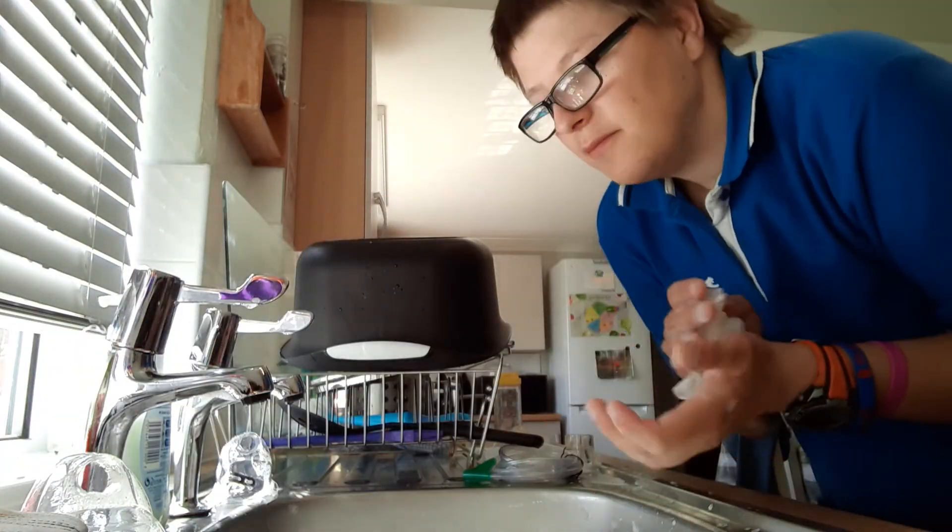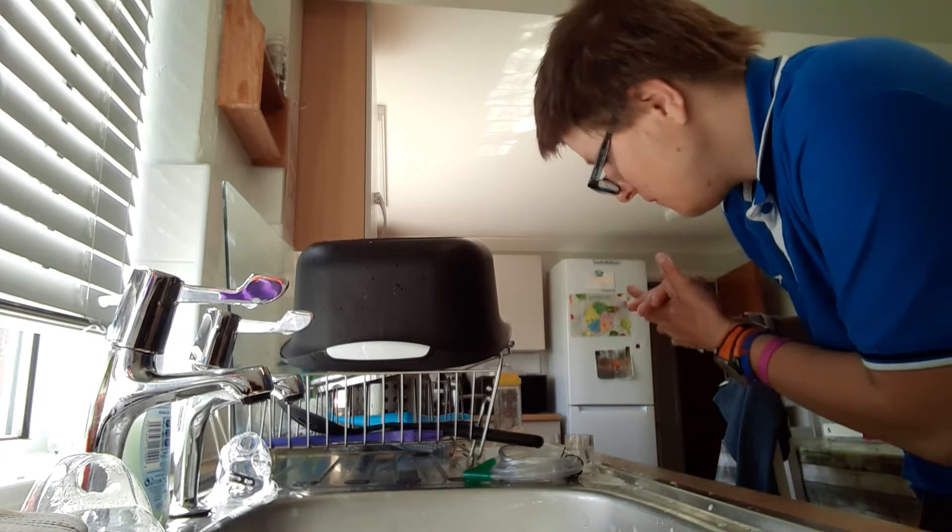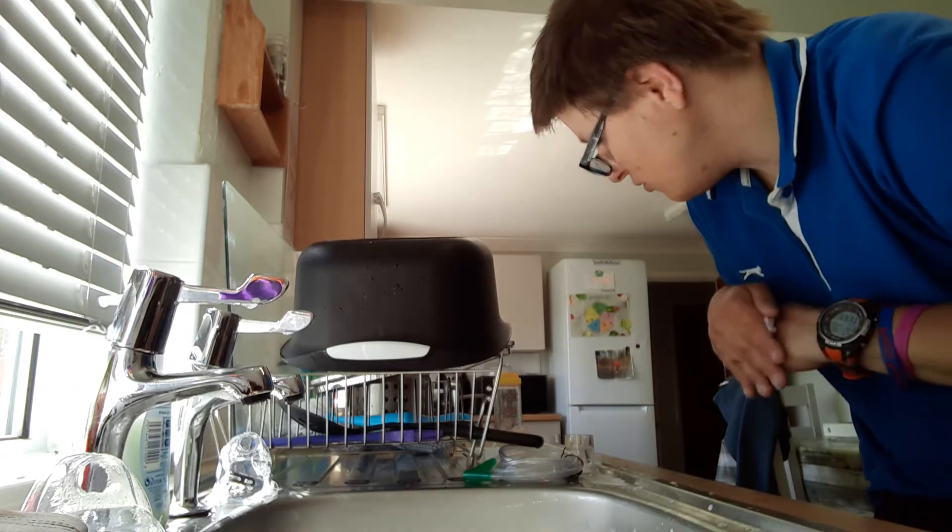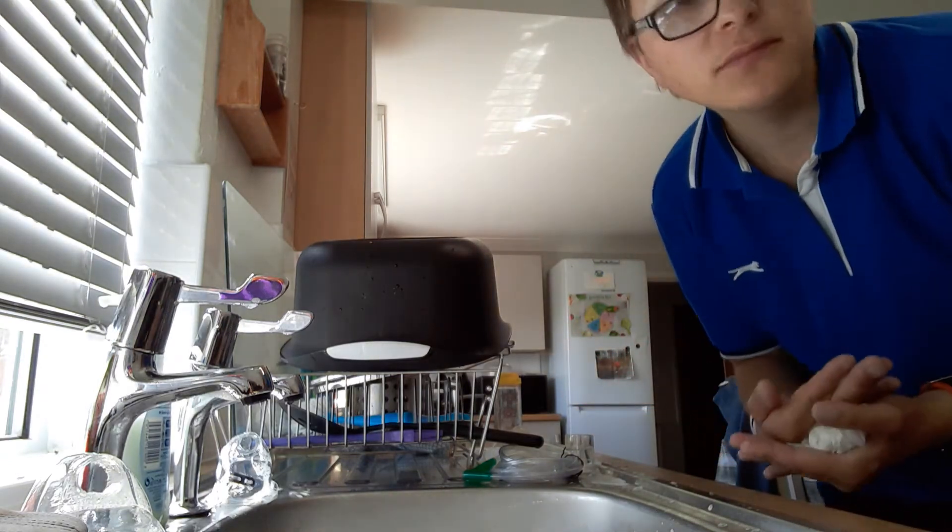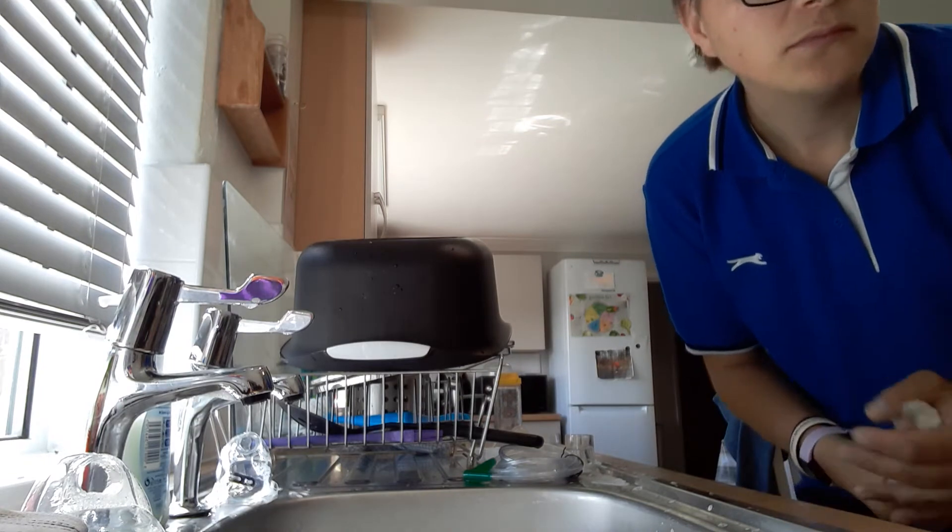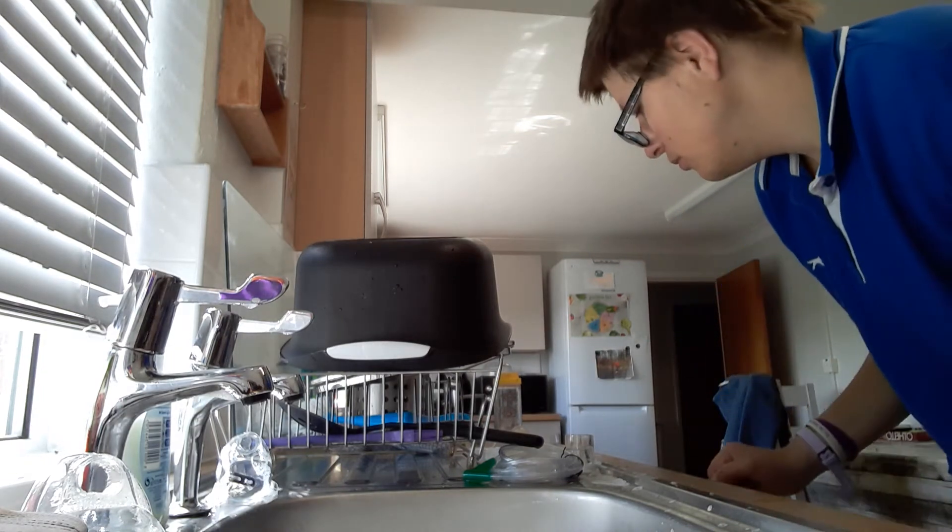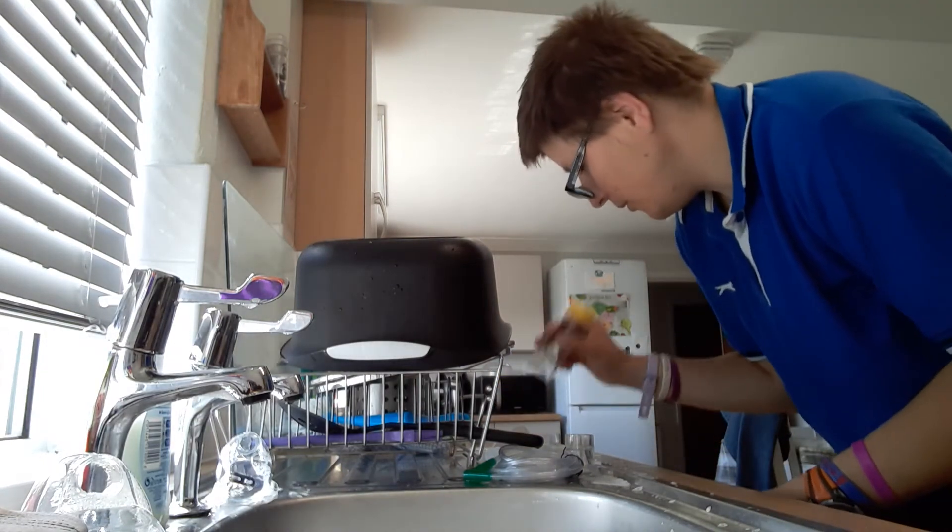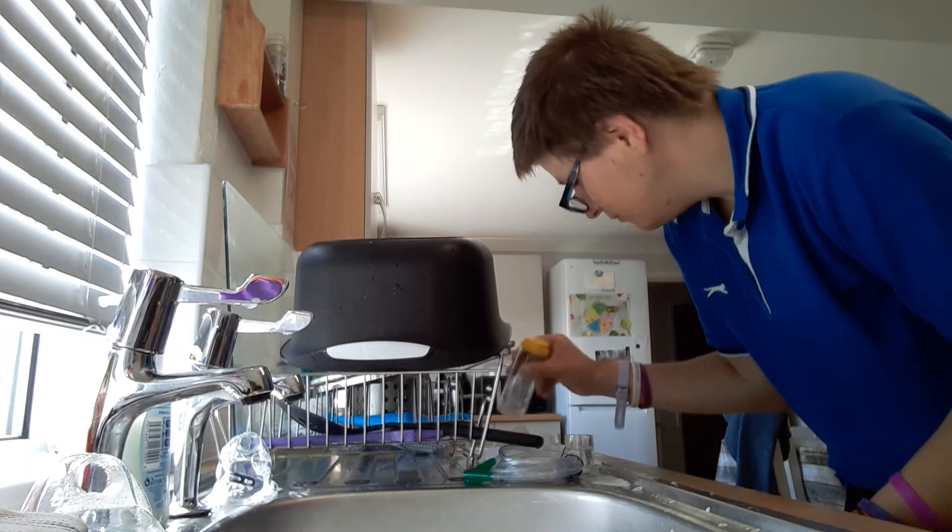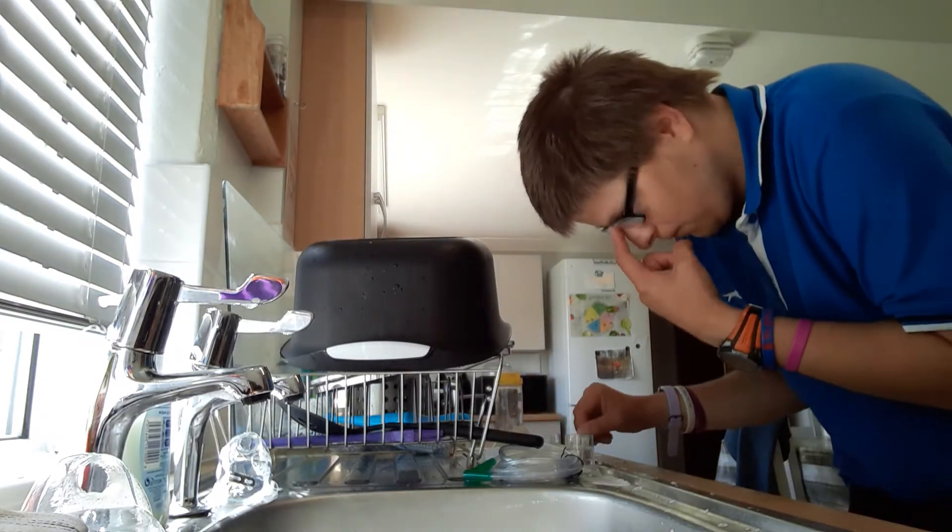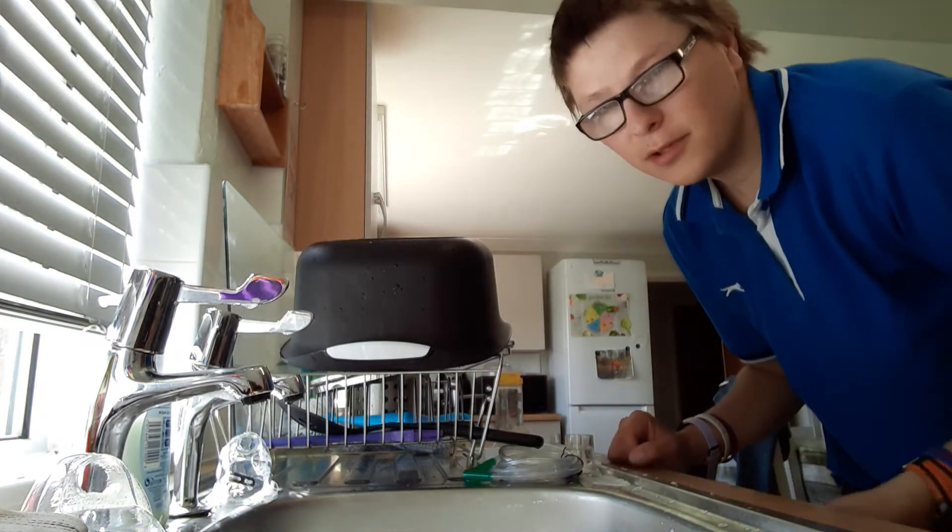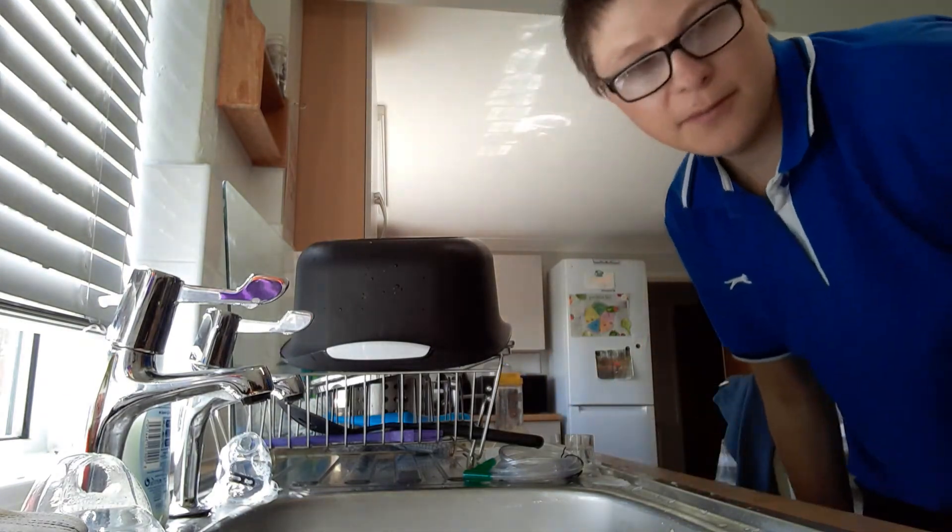Now you leave them to drip dry. When they're dry, you can put them away and store them in a cool, dry place. And when you clean them, you can put them back together.